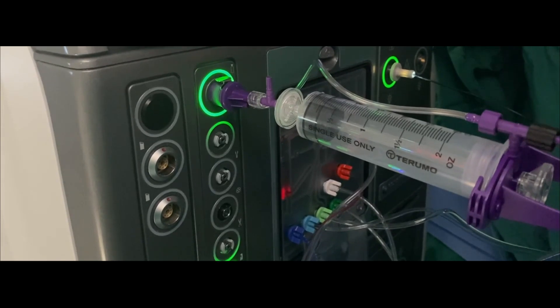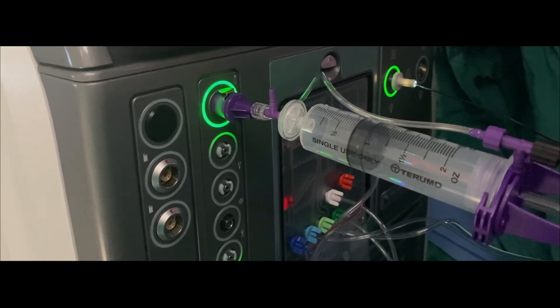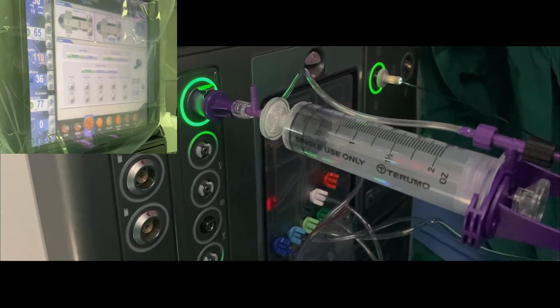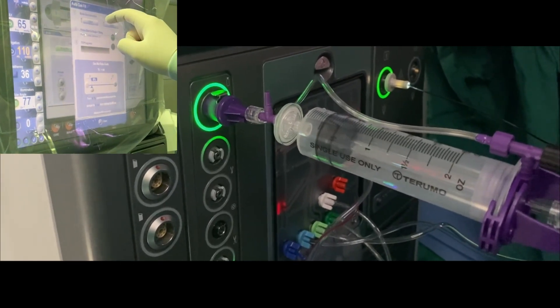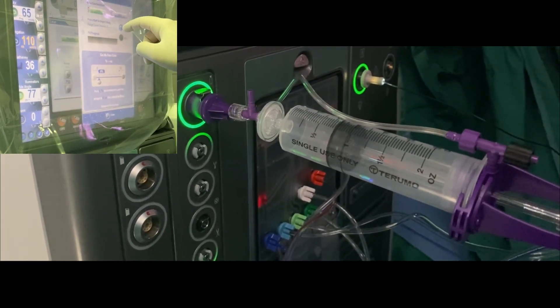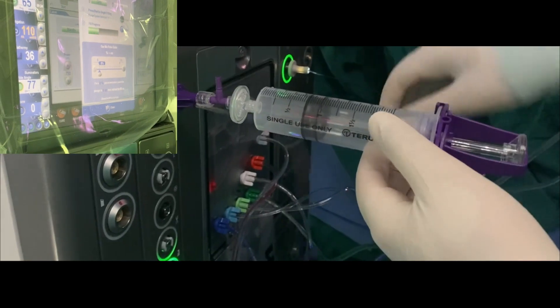There are a few techniques for undiluted gas aspiration. The first technique consists of using a vitrectomy system. There are vitrectomy machines where gases are stored in tanks connected to the back part of the vitrectomy machine. When the type of gas is selected on the monitor, after syringe insertion, the vitrectomy system automatically pumps the undiluted gas into the syringe through the filter. Afterward, the syringe with pure gas is disconnected from the vitrectomy machine and room air is added to dilute the gas.